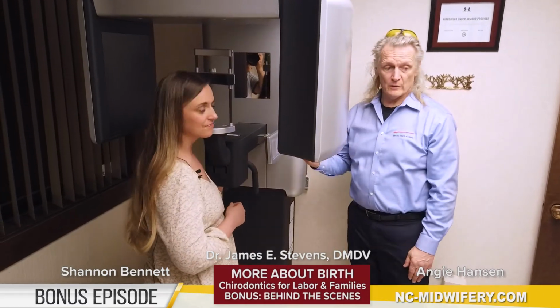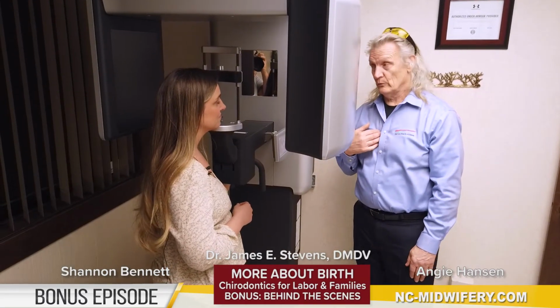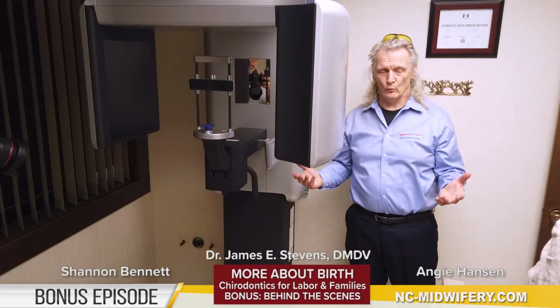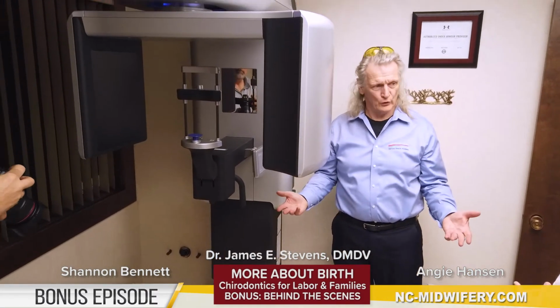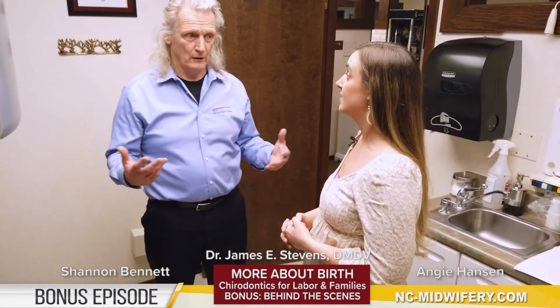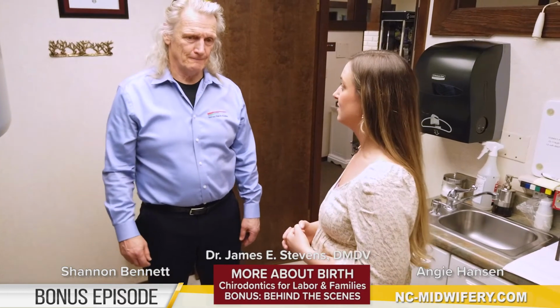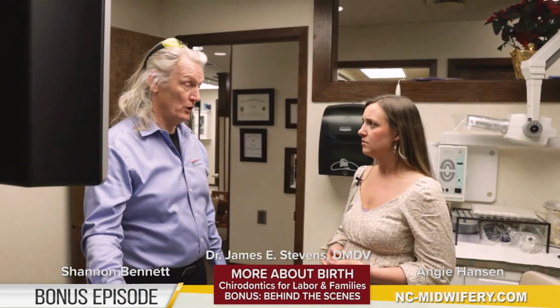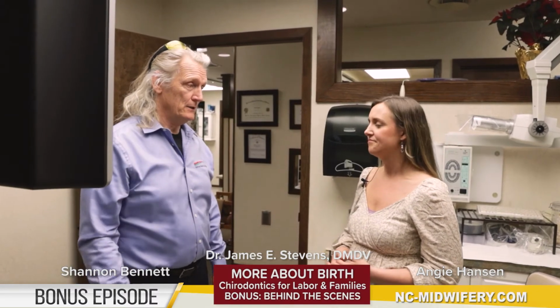Awesome. So this has become our mainstay in our office. The traditional full mouth series of X-rays or panoramic X-ray, we don't do very much anymore. There's no shortage of patients that need this, and especially there's no shortage of little kids that need this. So we really want to, as I said, be missionaries of that word.